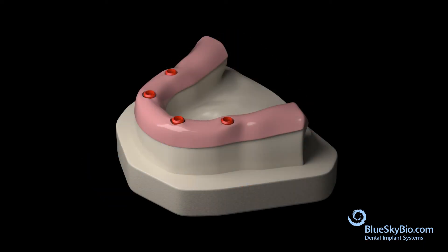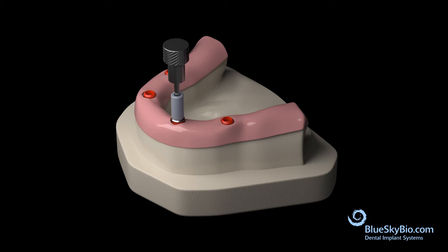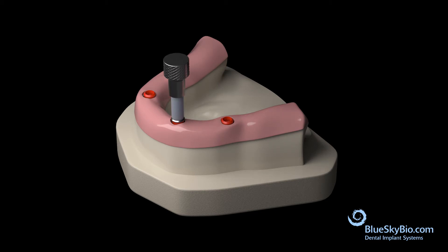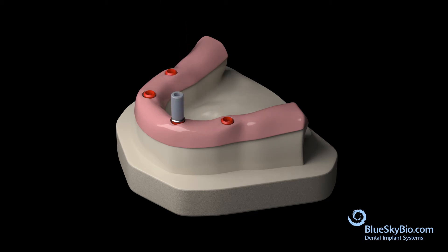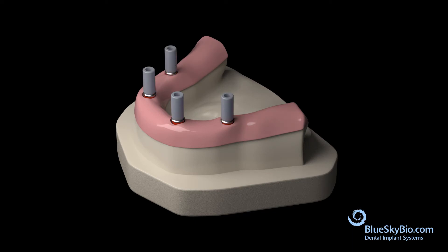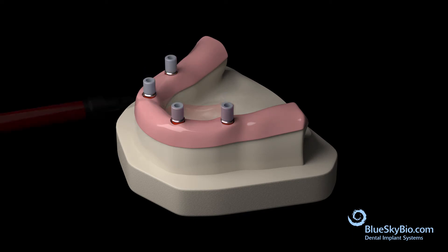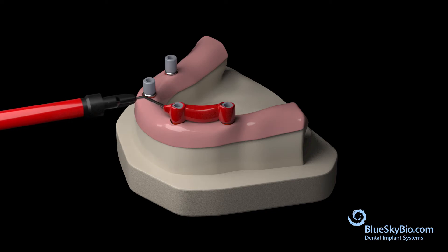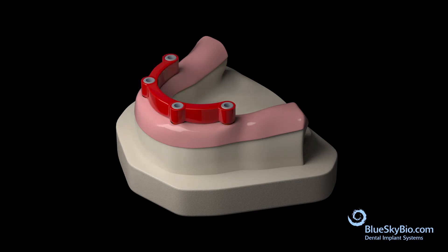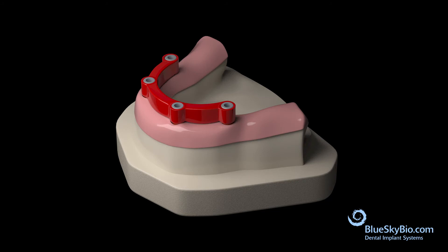Place UCLA abutments onto the implant analogs. Trim the UCLA abutments. Begin fabrication of the UCLA bar by placing Primo pattern or wax directly to the castable plastic portion of the UCLA abutment.